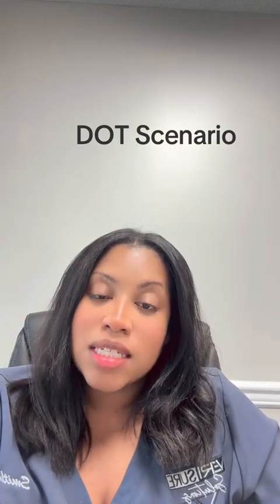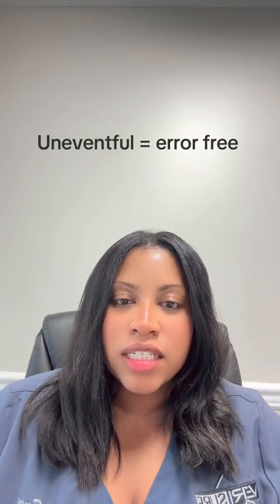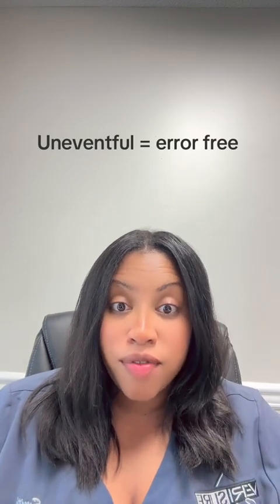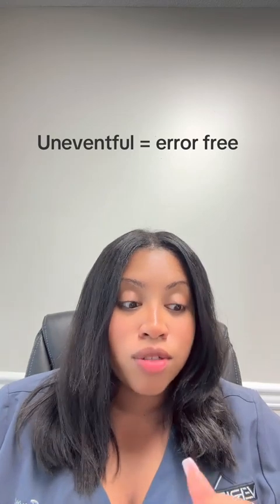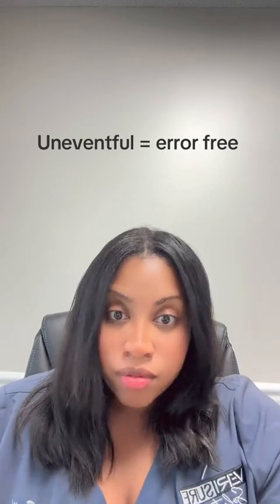Today we are going to be going over the DOT drug test mock scenario for uneventful. An uneventful DOT drug test is when a donor comes in to do their drug test and everything is just fine from start to finish. There's no hiccups, no discrepancies, nothing. It goes smooth, a smooth process.